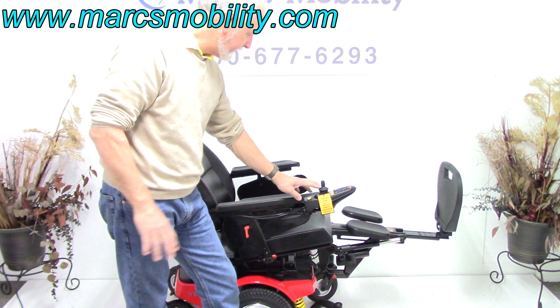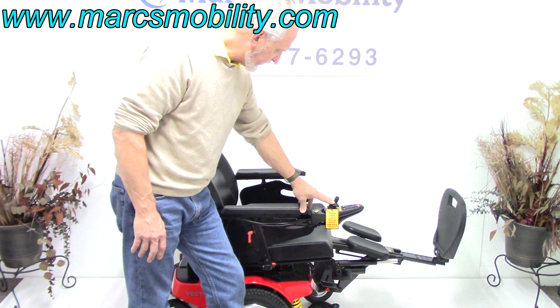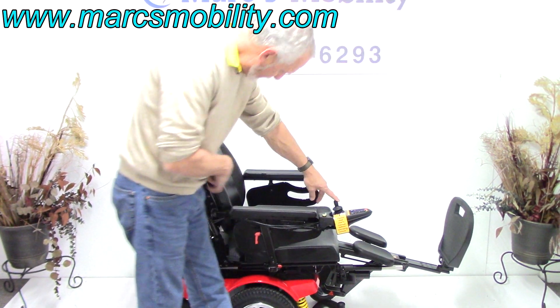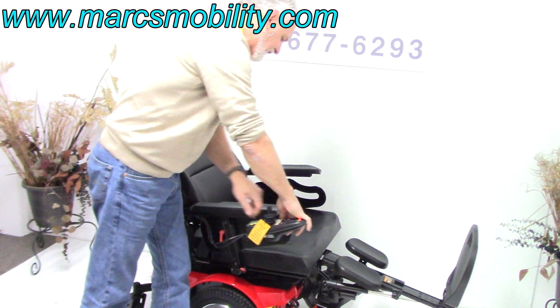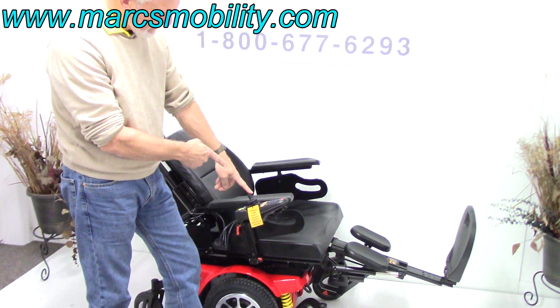You can go back to the tilt and your legs will be straight out — go as far back as you want. So that's the electric tilt, that's the electric legs, and the next one is the electric recline, which is just the back going back by itself. While the back is going back, this is a swing-away joystick, so the joystick can swing away to the side.